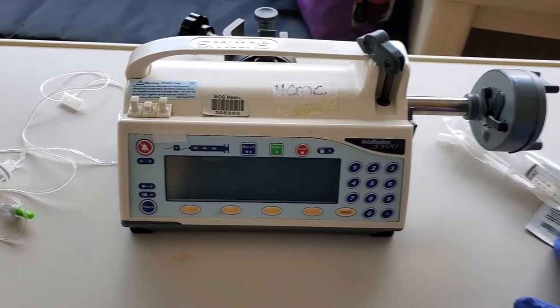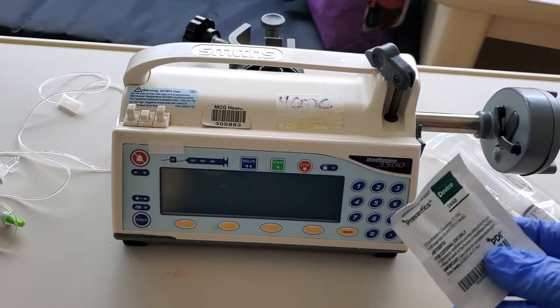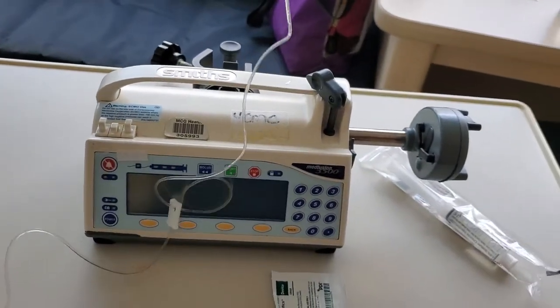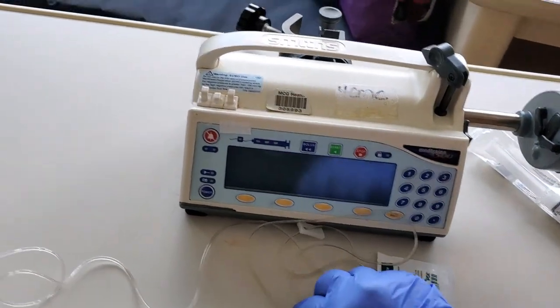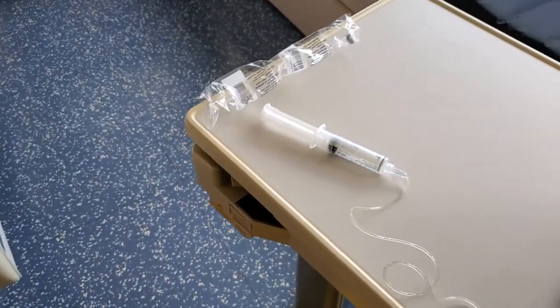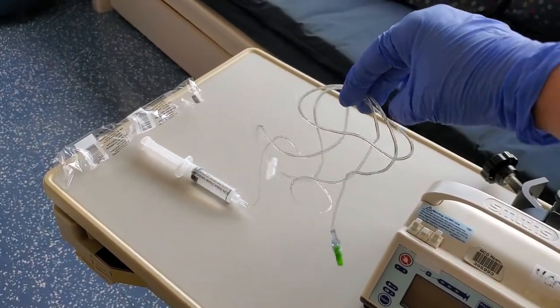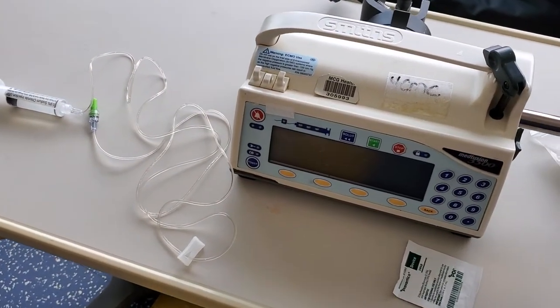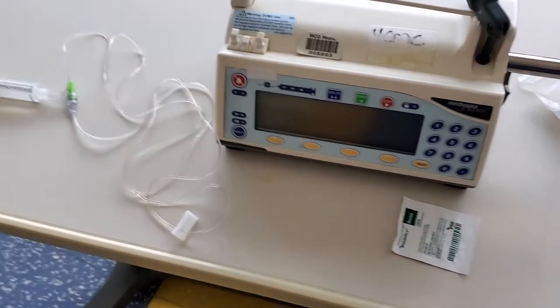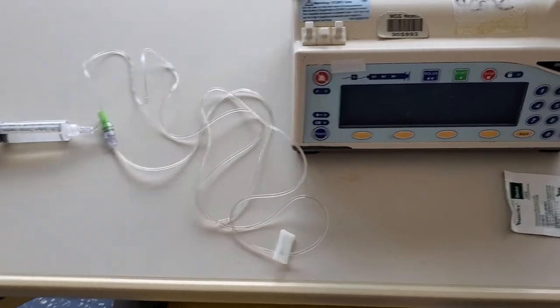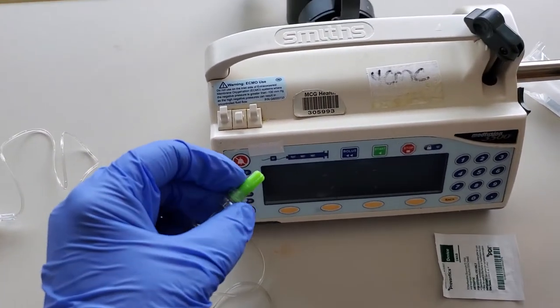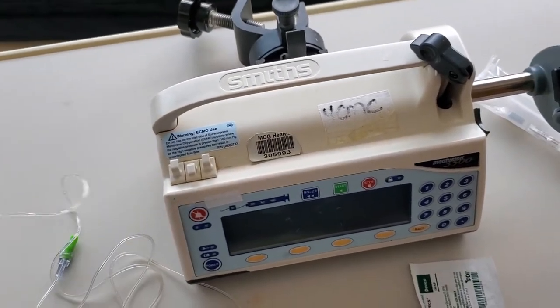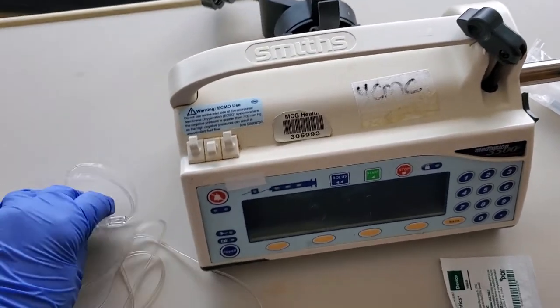You will need your approved cleaning agent and micro-bore tubing. Now I just have some that was a couple months old. It's not working the best, but it's really thin tubing. If you look at the length of this tubing, it's approximately 60 centimeters but it only takes 0.48 milliliters to flush. Lots of room to move around but a little bitty amount of fluid to flush it. Protocol is to leave a Curos hot dog cap, as we call it, on the male end and then the hamburger cap on a port on the female end.